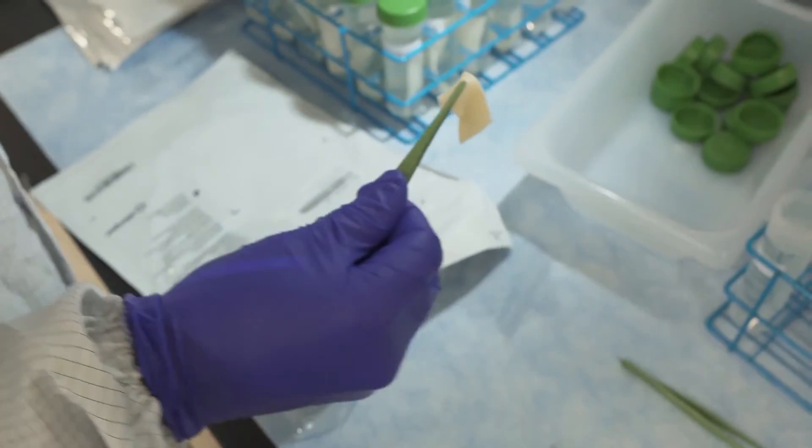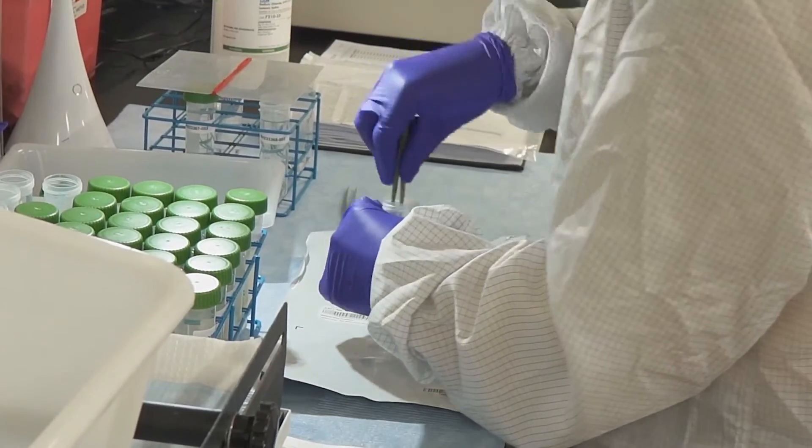Before a packaged lot is released, there is a final quality control evaluation. A sample from each lot is examined histologically.